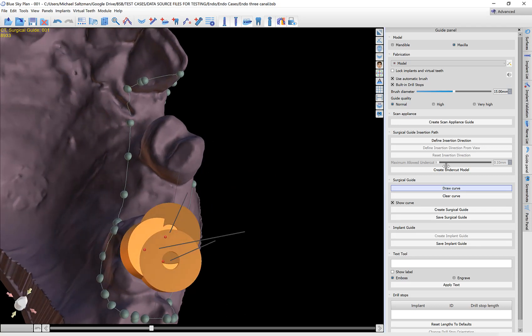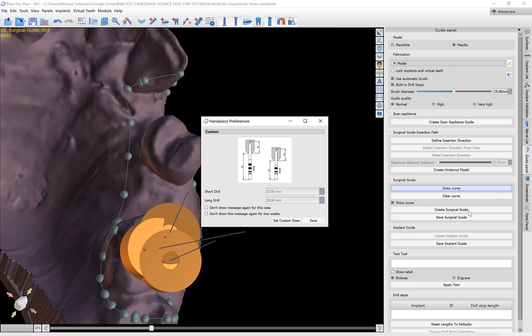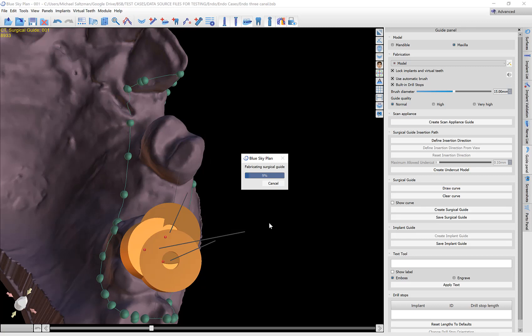I'm going to click Create Surgical Guide. Because we previously selected the Blue Sky Bio Direct Cut Drills, we're able to modify the length of the drill and the software will automatically update the height of the surgical guide so that the drill bottoms out according to our implant plan — our implant placement representing the drill path to the proper depth. If you're just using one drill, click Set Custom Sizes and make both values the same. If you have multiple drills with multiple lengths, enter the long and short variations and the software will customize the surgical guide automatically to the proper depth for the drill closest to that depth. I'm going to click Save.